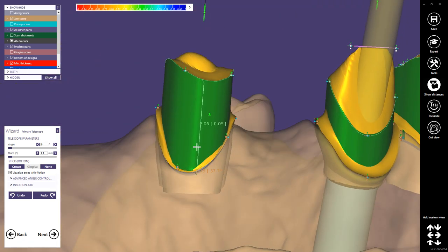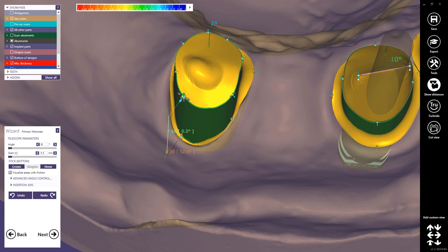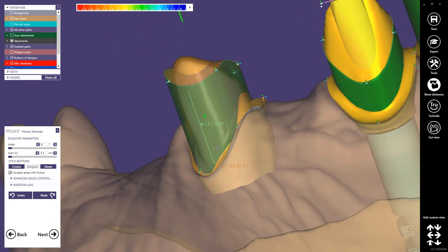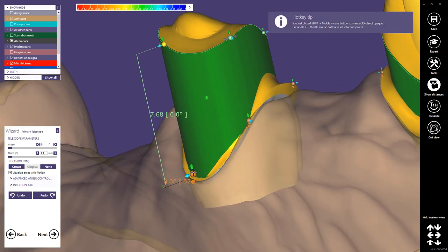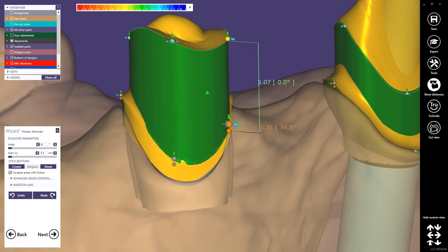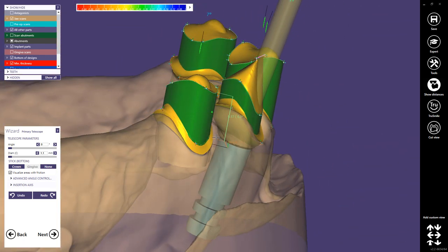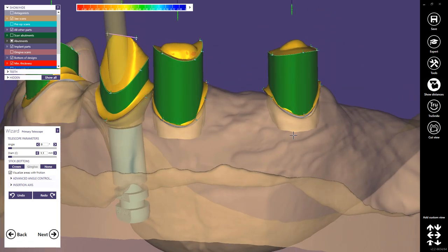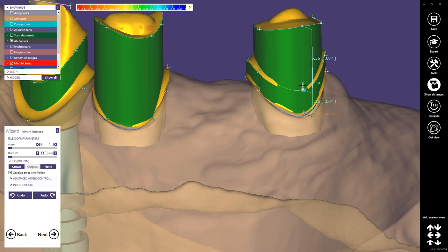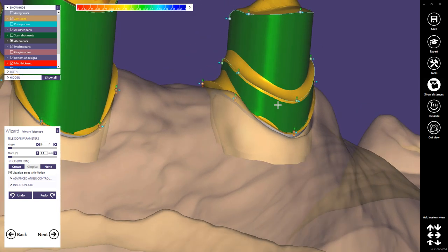Once I pull the points down on the border, the telescope gets thicker — and that's the problem. We're always trying to make primary parts as thin as possible; you can see it's much thicker than the minimum thickness because of the placement of the border. If I go higher, I can go inwards and it gets much thinner. You could also create a second curve with Ctrl+Shift+Left to add another curve, and then define two friction areas — moving the upper one inwards to create it as thin as possible.